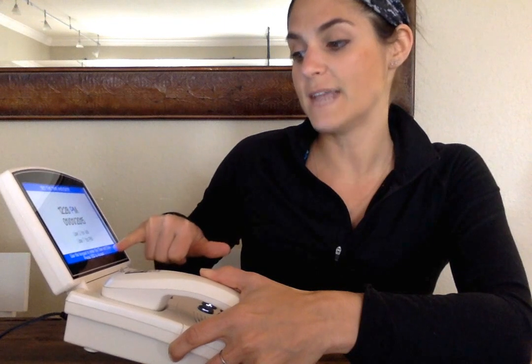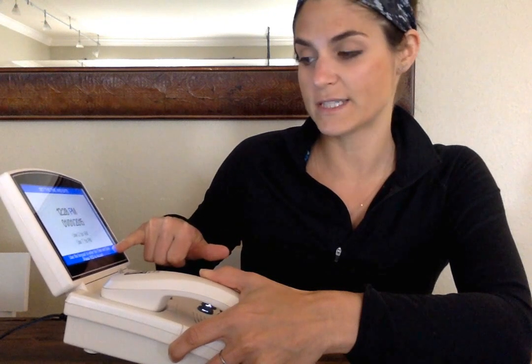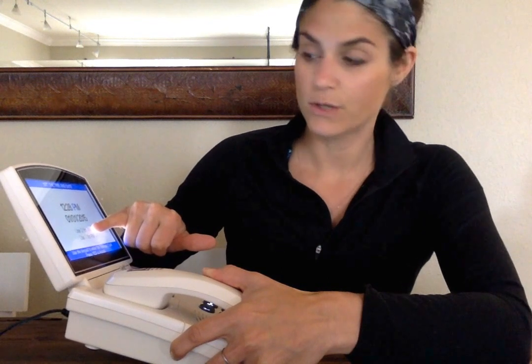It'll go to the AM or PM button. You'll notice at the blue under here, it says use the keypad to enter the time, which we just did, and date. Press yes to accept. Press 2 for AM, press 7 for PM. So right now it's 12:28 PM. I'm going to press 7 so it stays as PM.